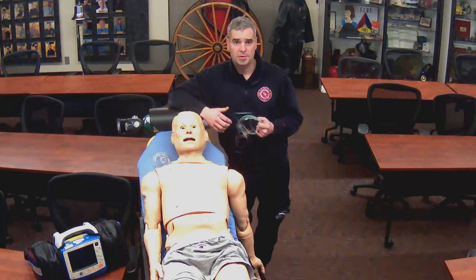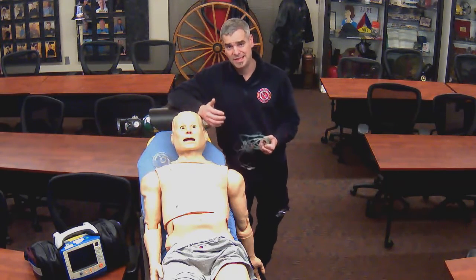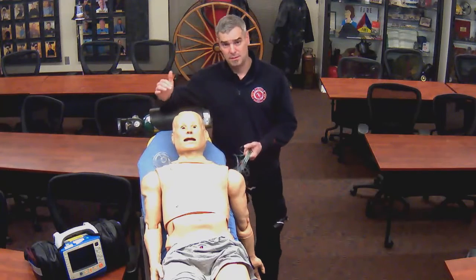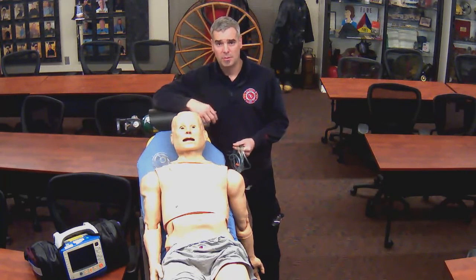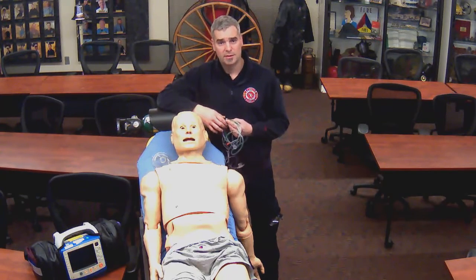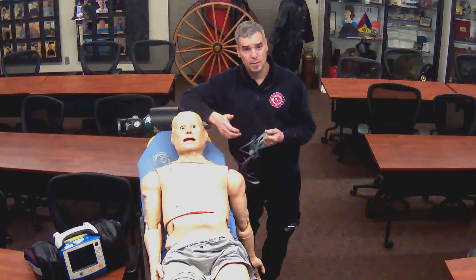We can administer nebulized medications like albuterol and actually see a difference quantitative-wise in the figures on there, but also on the waveform that's being presented on the monitor, and actually see the kind of progress that we're making. So there's two ways to obtain ETCO2 with the equipment that we have.